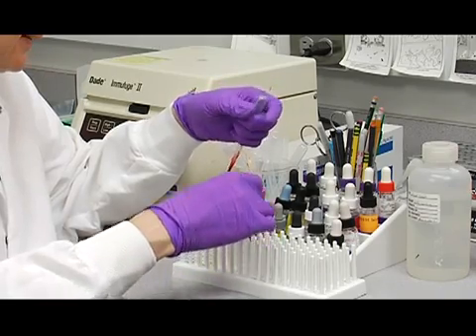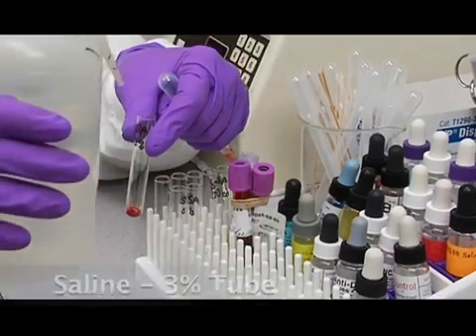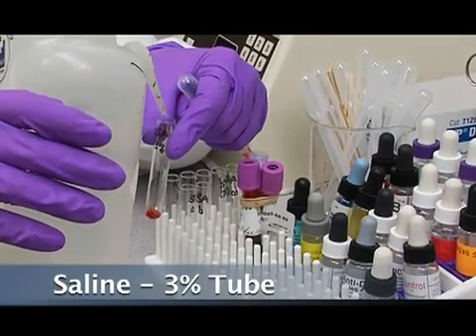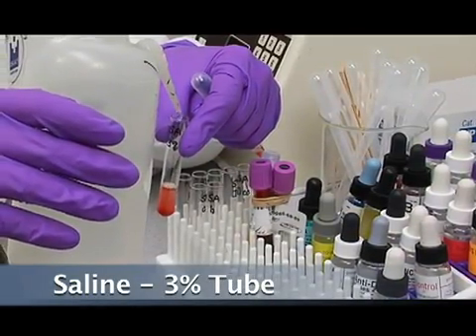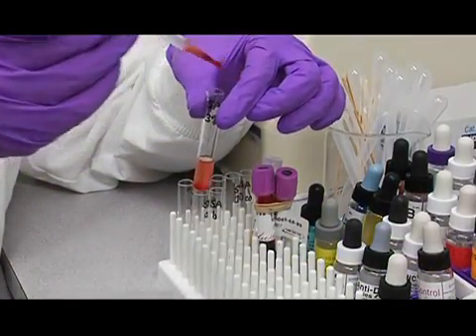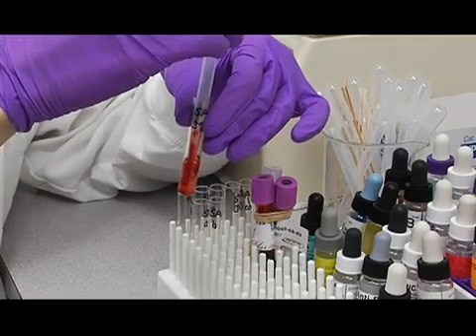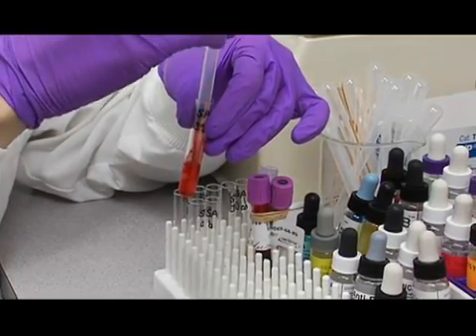I'm going to add the saline to the cells. And with 1 drop of packed cells, you're going to add about this much saline to start. And then we're going to rinse out what's left in our pipette into the saline. You don't want to bubble into the saline.